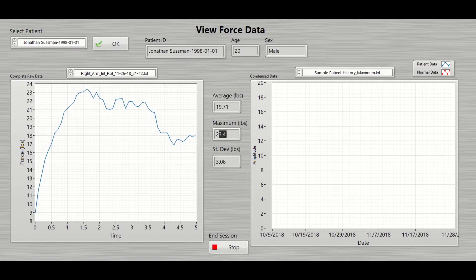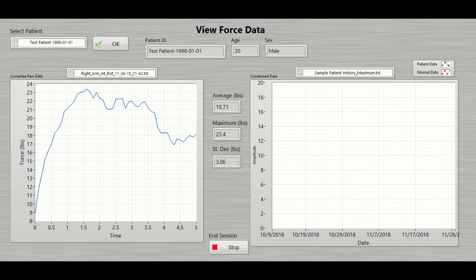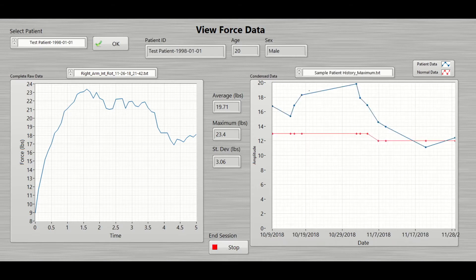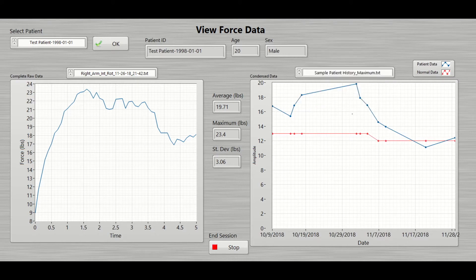The average, maximum, and standard deviation values are displayed to the right of the plot. The plot on the right shows how the data changes over time. For each of the tests, the user can flip through plots showing the change in maximum, average, and standard deviation. The blue points show the patient's data, and the red points show standard values for that particular measurement.